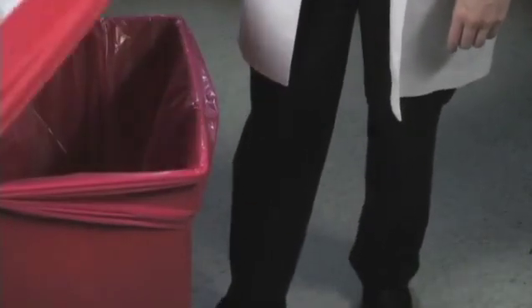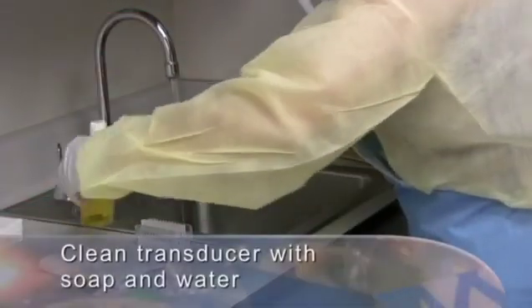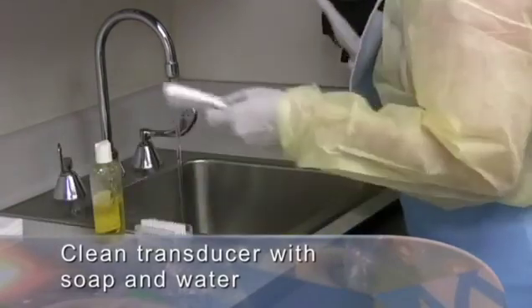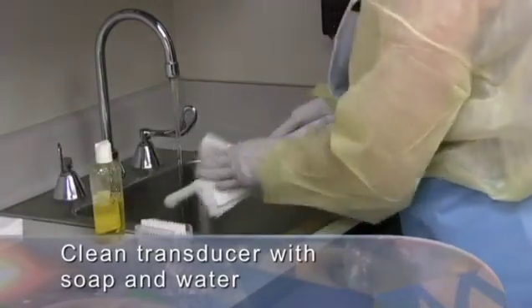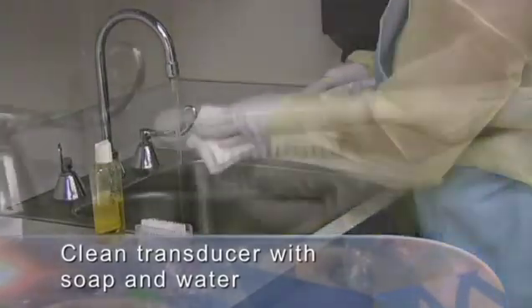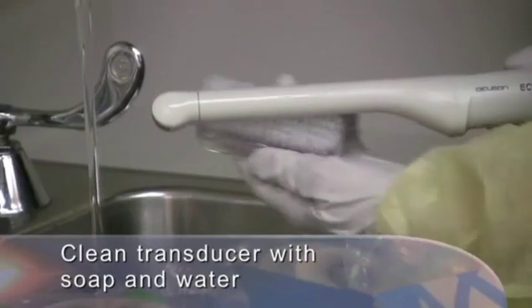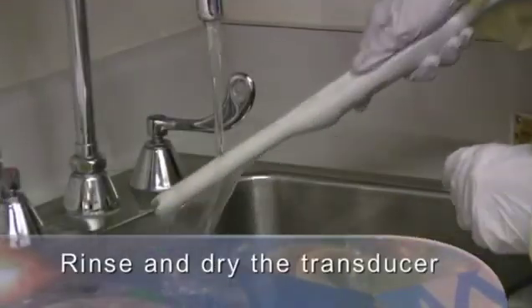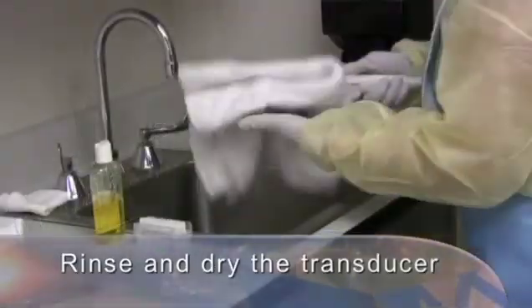Once the study is over, remove the cover. The cover should be disposed of as biohazard trash or as required by your facility. The transducer should be cleaned with soap and water, removing all gel and gross contamination. If necessary, a small brush may be used to clean the crevices of the transducer. Rinse and dry the transducer.